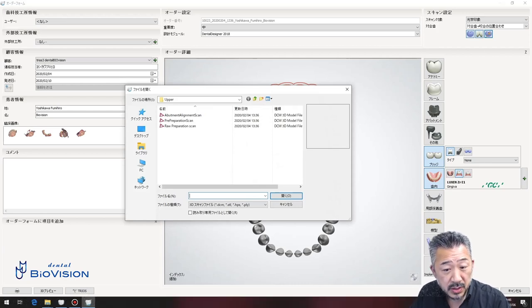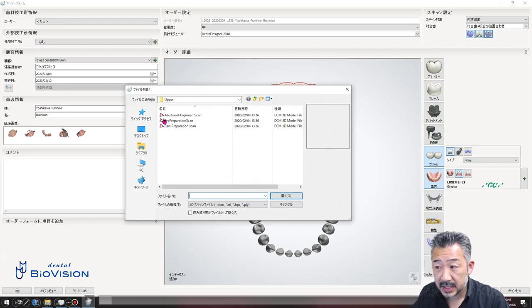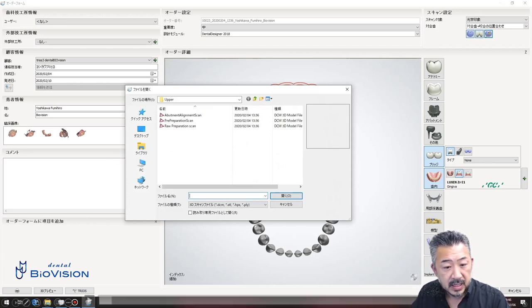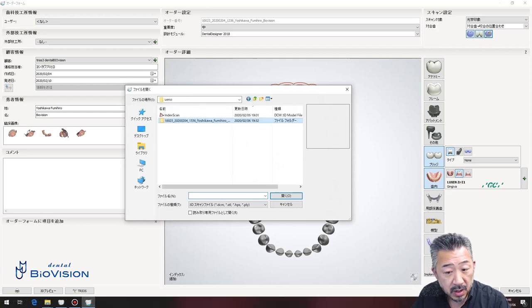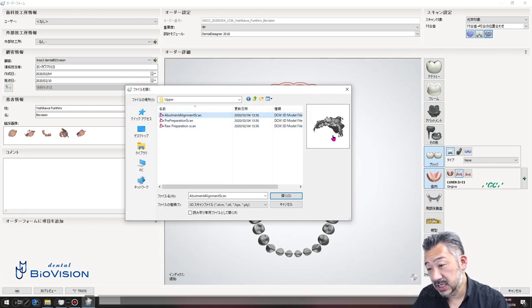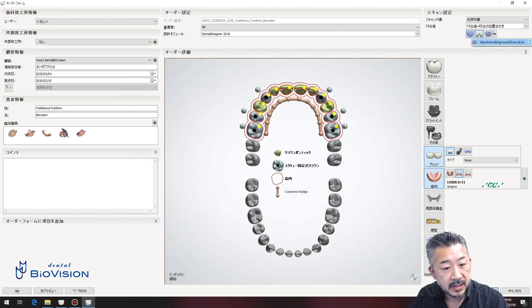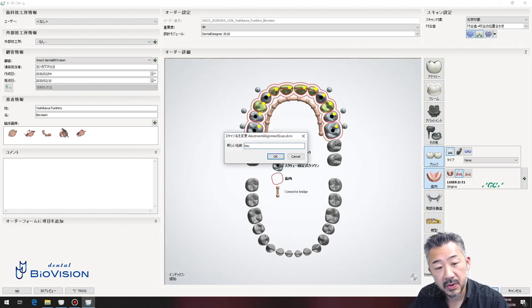It displays 'Do you want to re-import scan?' — please select Yes and look for the abutment alignment scan in the file. This is the abutment alignment scan. Attach the scan flag in the order and transfer the data taken here. Then rename the file to make it easier.